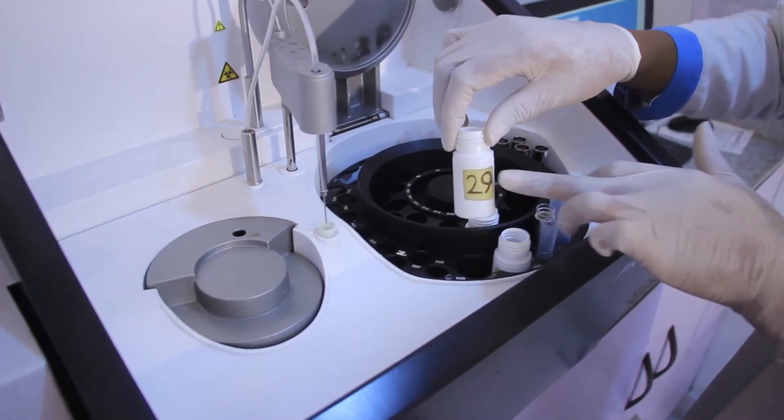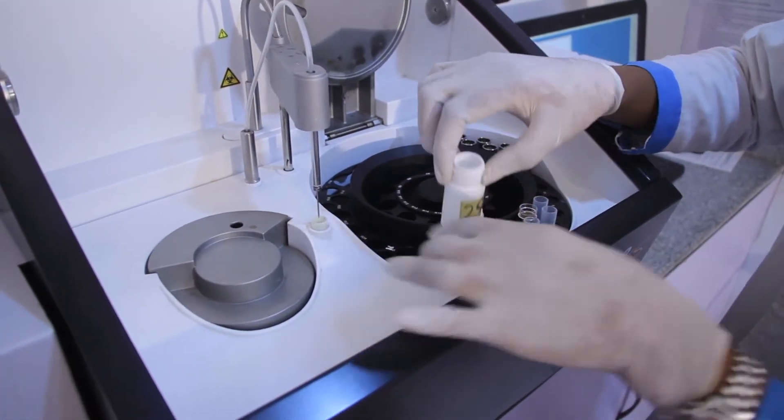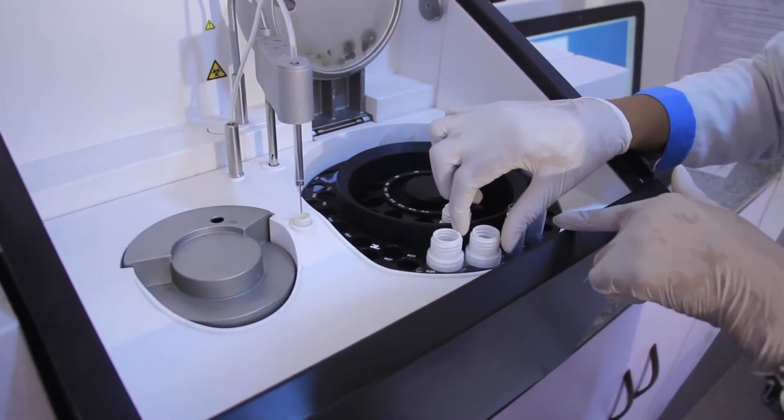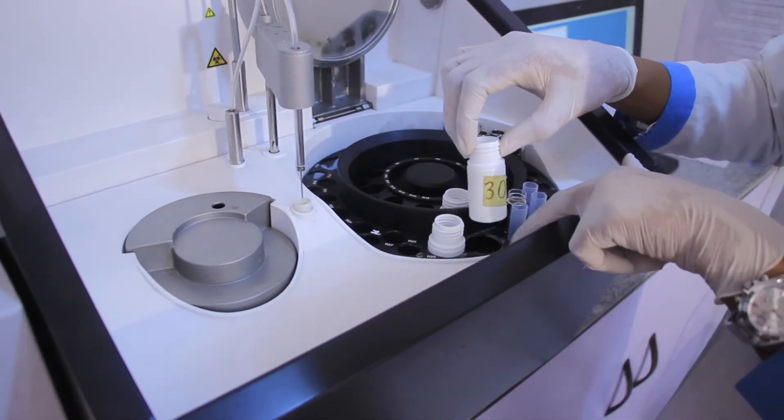Okay, we have something here. This is 29, this is a reagent. Likewise, this is 30. We place it on R30.